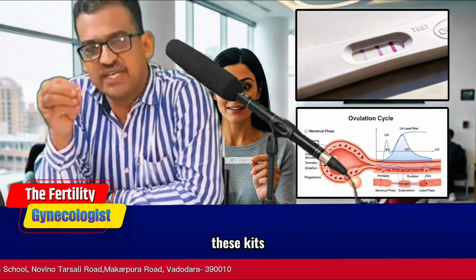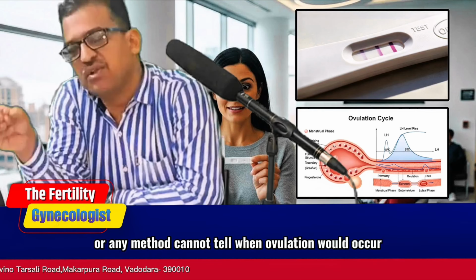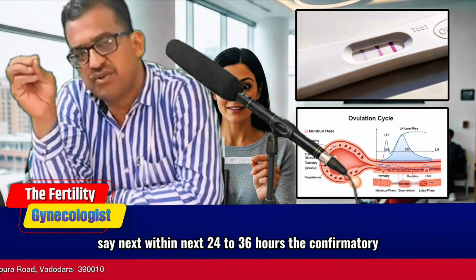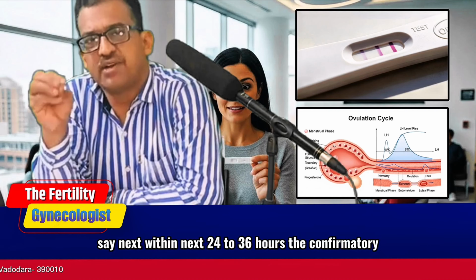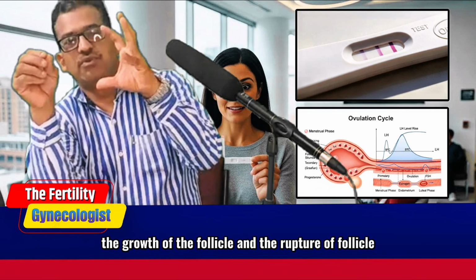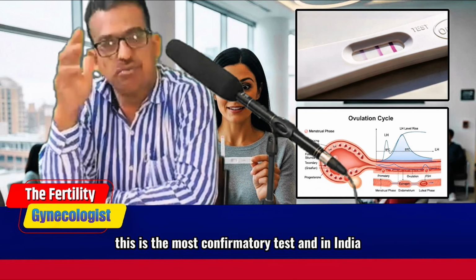These kits or any method cannot tell exactly when ovulation would occur, but they tell the vicinity that ovulation is about to occur, say within the next 24 to 36 hours. The confirmatory test of ovulation is ultrasound. That means we can confirm the growth of the follicle and the rupture of the follicle. This is the most confirmatory test.